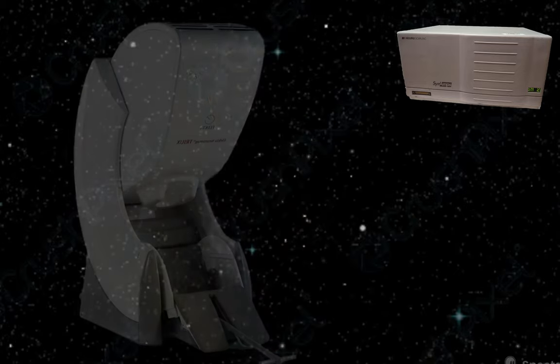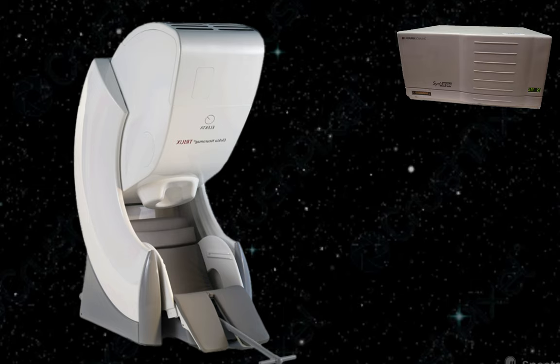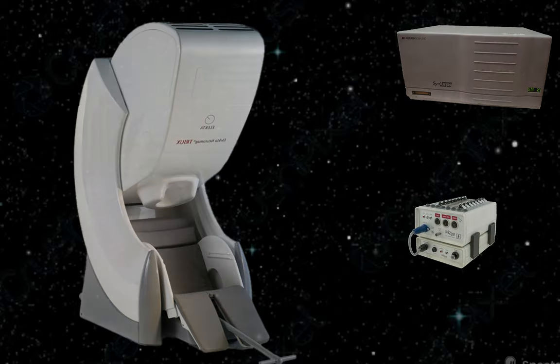Note that all the data from all three experiments were acquired in different conditions. The go-no-go uses a NeuroScan amplifier and a CZ reference. The face dataset uses an EEG system of a Neuromag MEG machine. And the oddball dataset uses a Biosemi amplifier. Now we are ready to see how preprocessing affects the outcome.